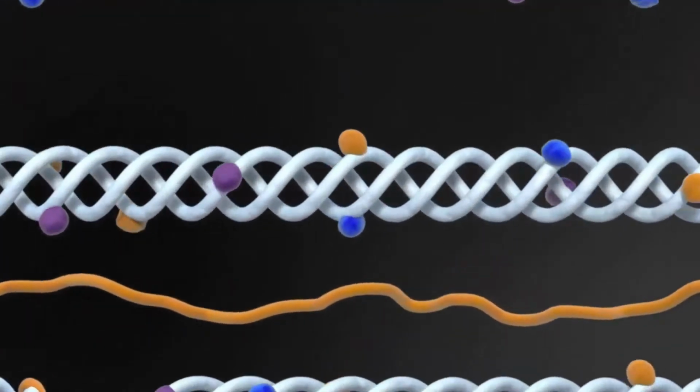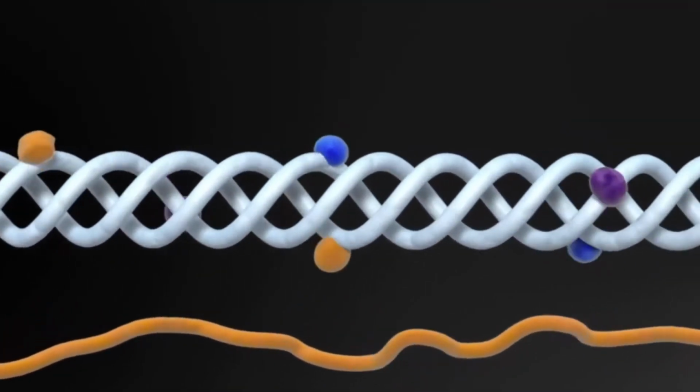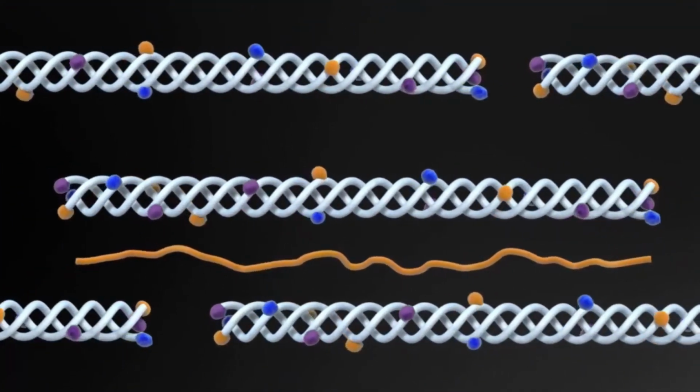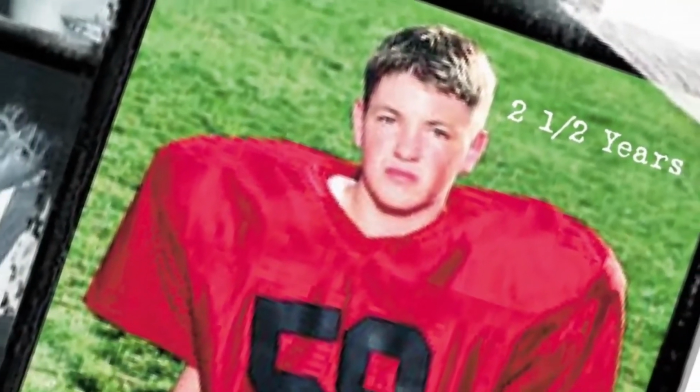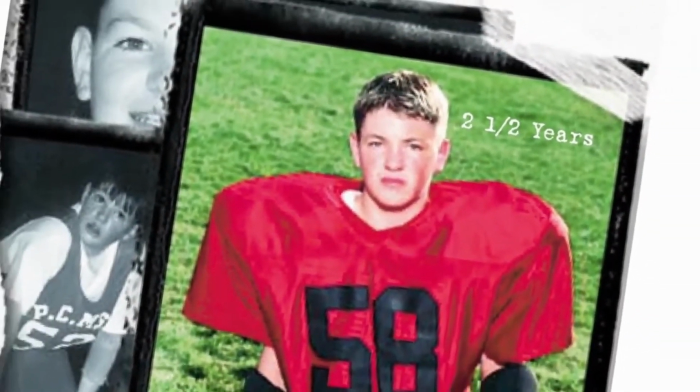The Type 1 ultra-pure collagen used in the DuraGen matrix and other Integra implants is treated in a unique process that removes all non-collagenous components, including potential antigens and any viral and bacterial contaminants. In 30 years of use, these implants have made a significant difference in the lives of millions of patients, helping them heal with no confirmed reports of foreign body reactions or rejections.